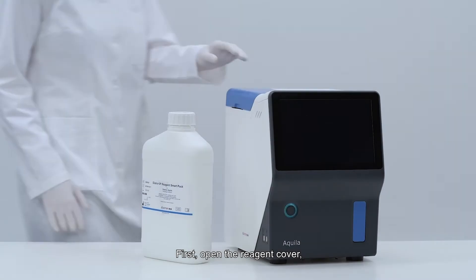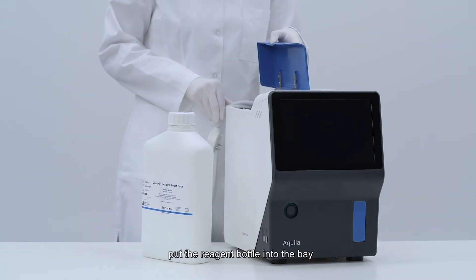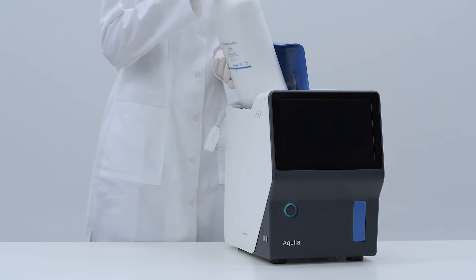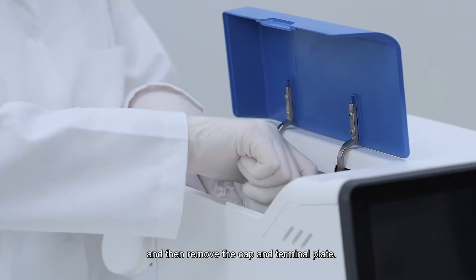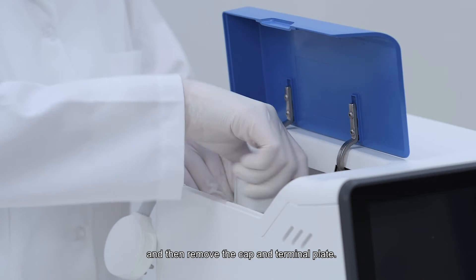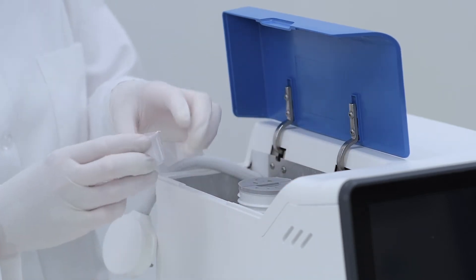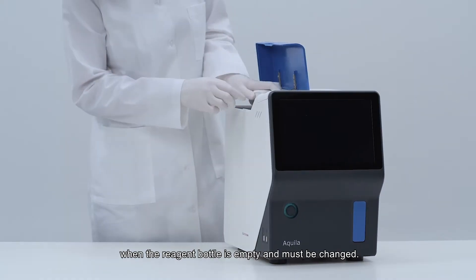First, open the reagent cover. Put the reagent bottle into the bay, then remove the cap and terminal plate. These can be placed next to the reagent bottle, as they are needed when the reagent bottle is empty and must be changed.